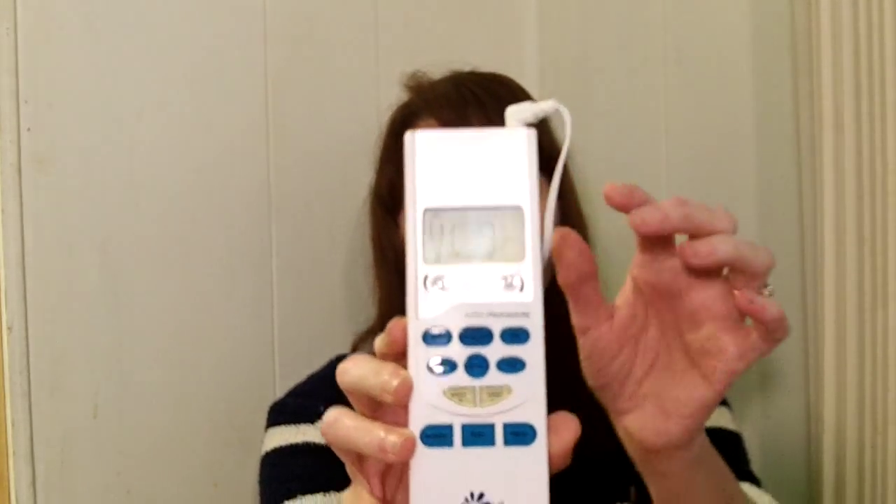For shoulder pain — which I do get occasionally — I would want it massaged or kneaded, and the screen shows exactly what you're doing. You can use both channels; you just hook the leads into their little lead holes and they slide right in. I put one pad on my lower back and one a bit lower on my hip to target that nerve. After I treat it, I'm pain-free for quite a while.